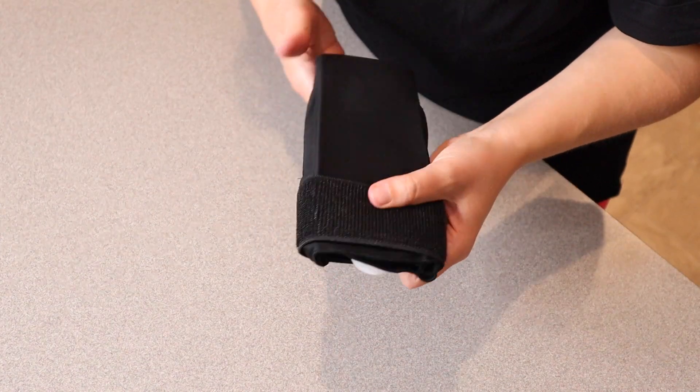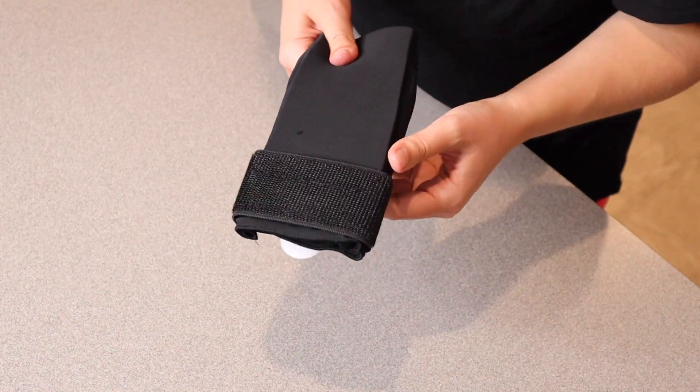Right here I have this wrist brace hand ice pack. I'm gonna go ahead and open this up and show you how it works. This is everything that it came with, just this ice pack besides the user manual.